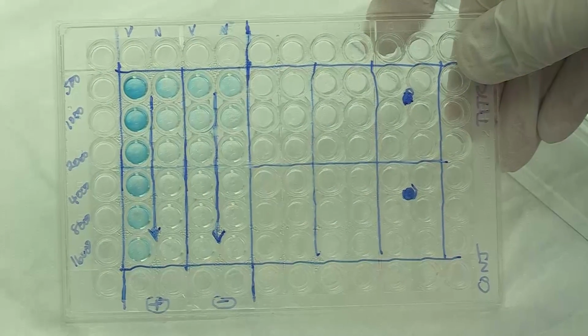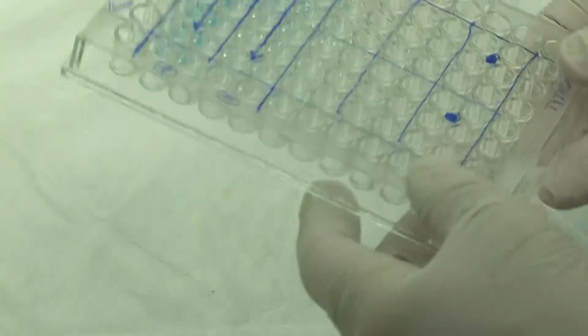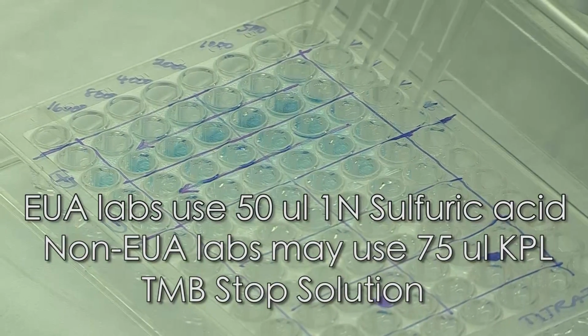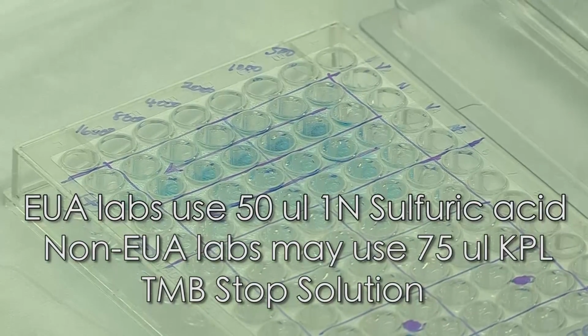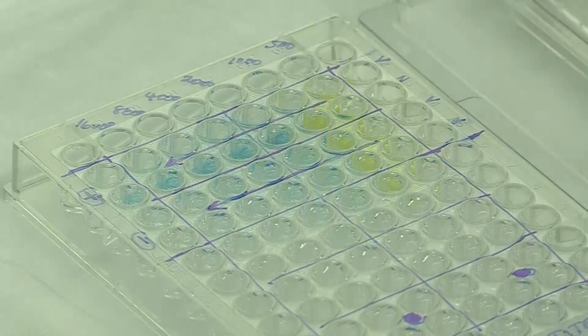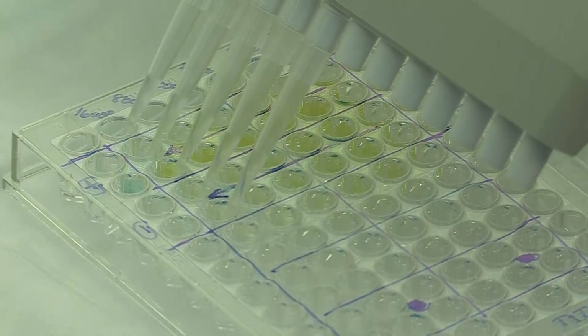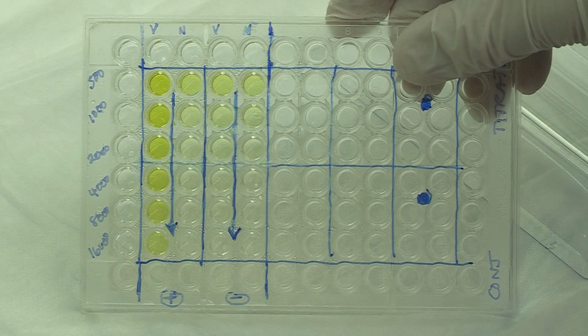Incubate the plate for 1 hour at 37 degrees C. Wash the plate 10 times and add 75 microliters of substrate per well. Place the plate in the dark and incubate at room temperature for 10 minutes. Add 50 microliters per well of stop solution and read at 450 nanometers after 1 minute.